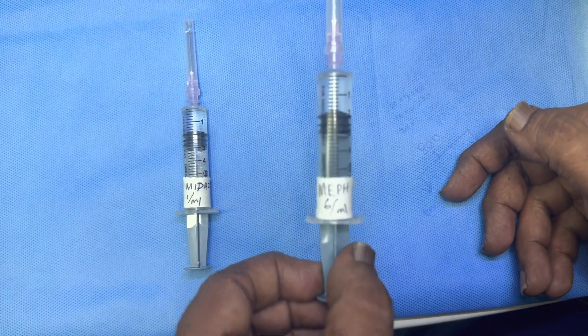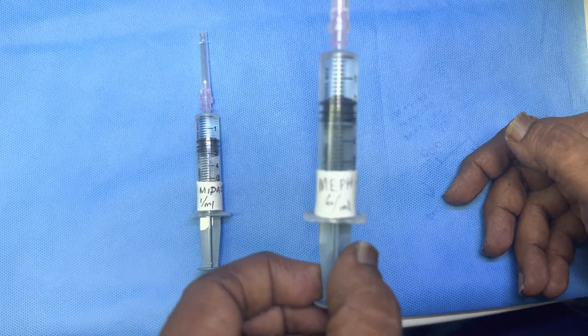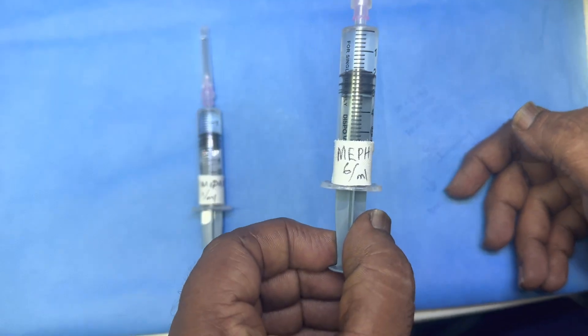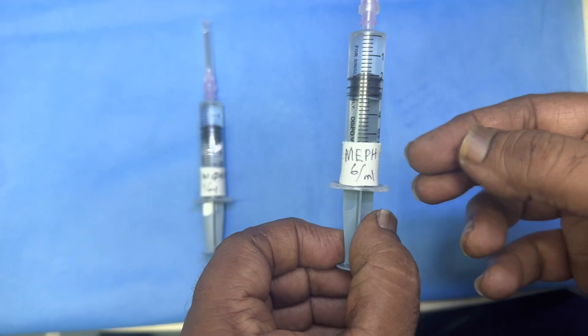Hello, I am Dr. Parasarthi. I am going to tell you how you are going to label the syringe.